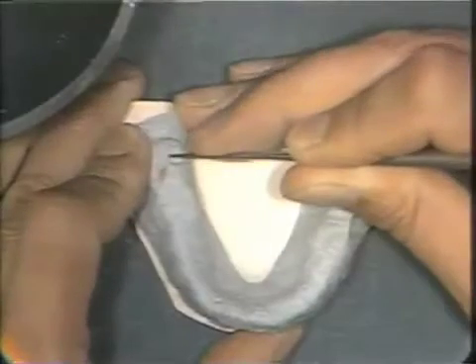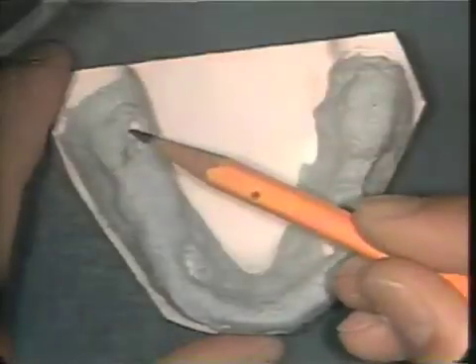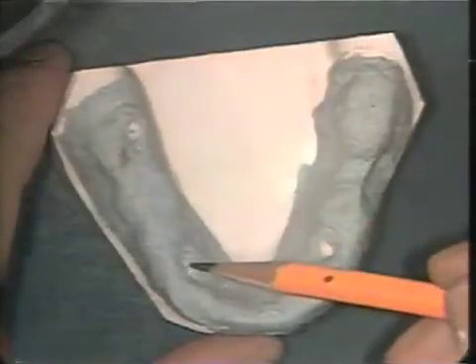The asbestos is relieved using a number 7 wax spatula to provide stop areas for the teeth on the teeth that are designated.